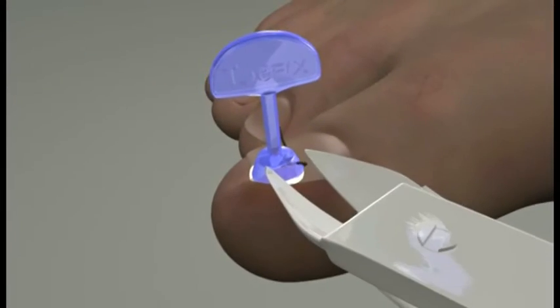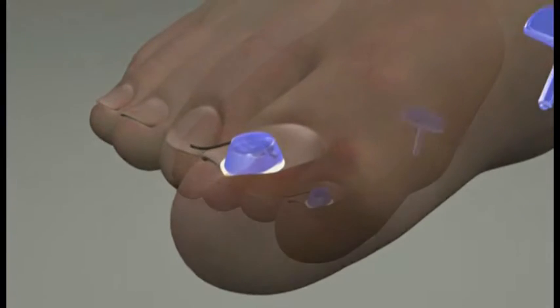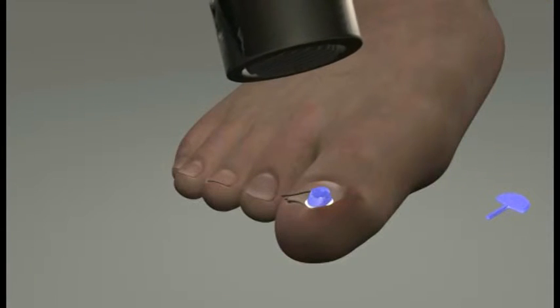Then we cut the handle with the cutters. It is recommended to dry the glue with hot air.